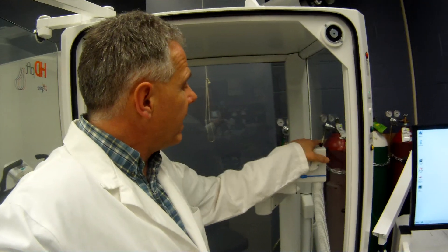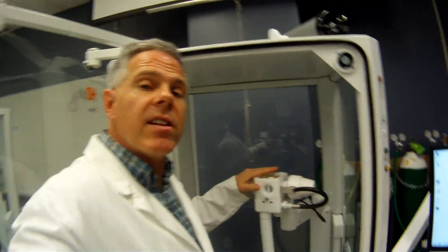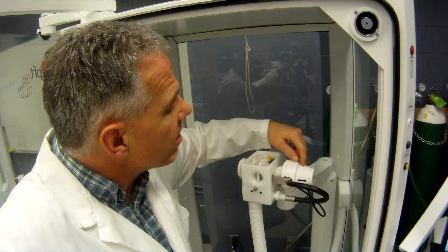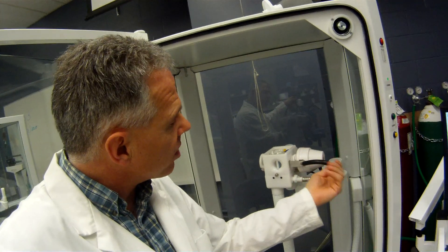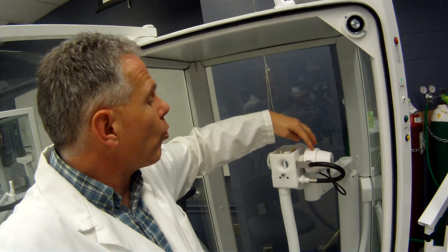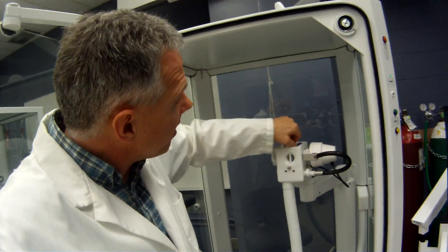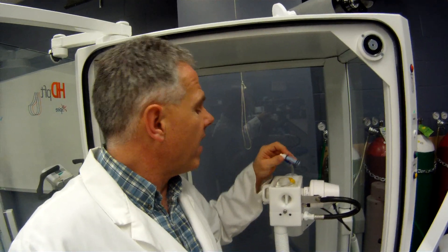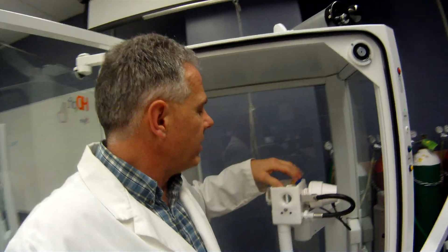This white part here is also our gas control unit. What this does is if you're doing a specialty test like a nitrogen washout or a DLCO, the patient will actually be breathing through here — this is our regulator. The gas flow, if it's 100% oxygen or the DLCO mixture, comes up through here and the patient will be breathing through this regulator. The way that gas flow is controlled is with a little balloon valve right here, and these can rupture, so these need to be checked fairly often. So if you're trying to do a test and it's not working, it could be because that's ruptured.